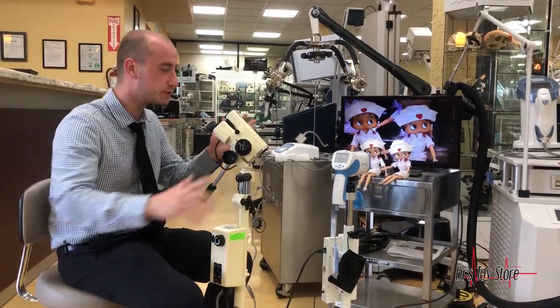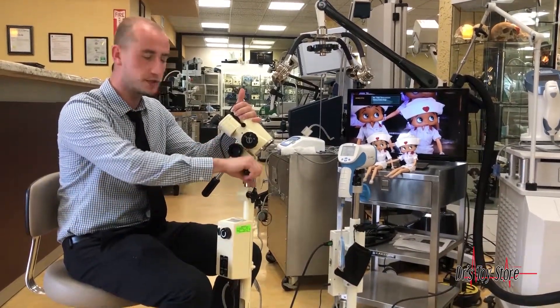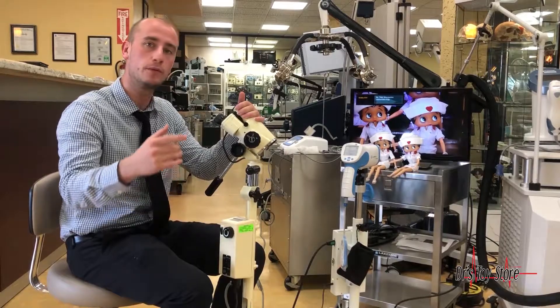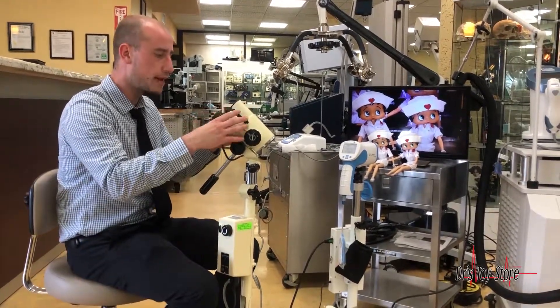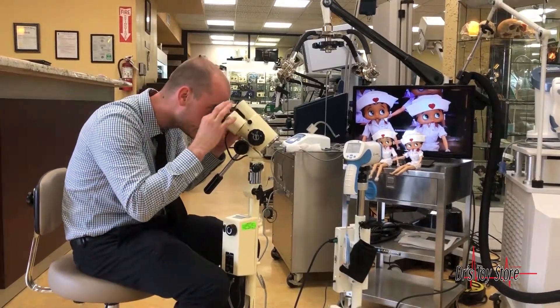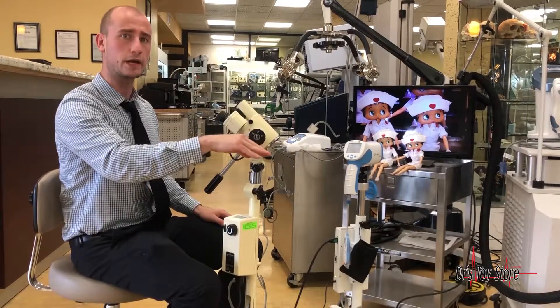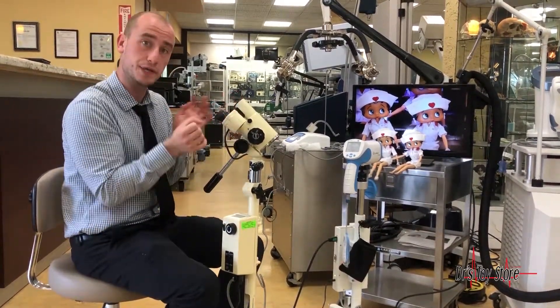Hi, Mike here with the Doctor's Toy Store and today's conversation is regarding the colposcopes. The difference between a manual colposcope and a video colposcope is very easy to understand. With a manual colposcope you're actually sitting there during your microscopy trying to focus the colposcope into what you're looking at, taking time and effort into focusing.